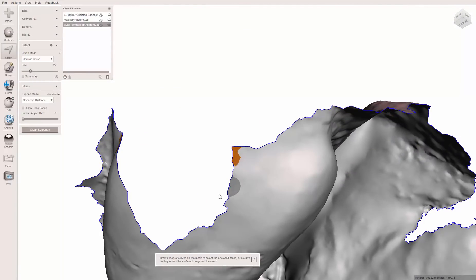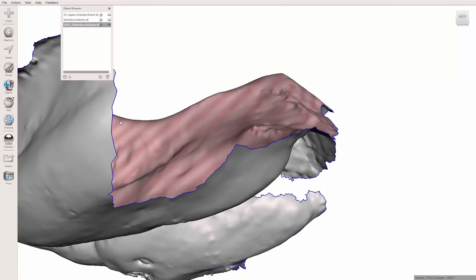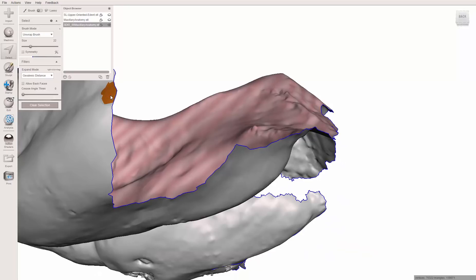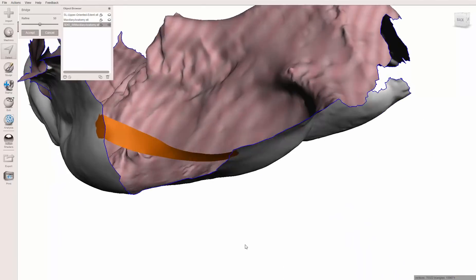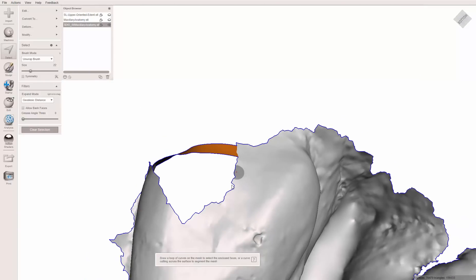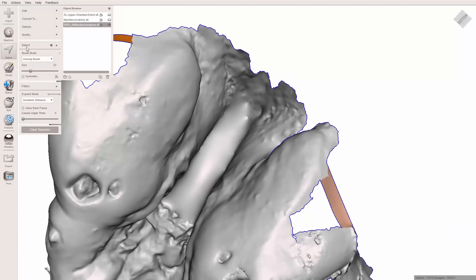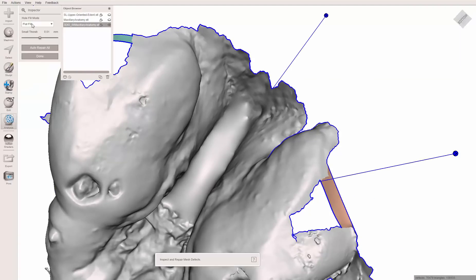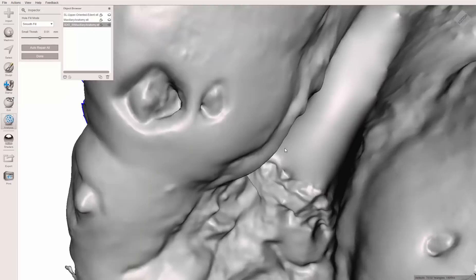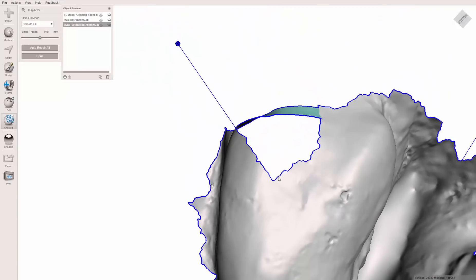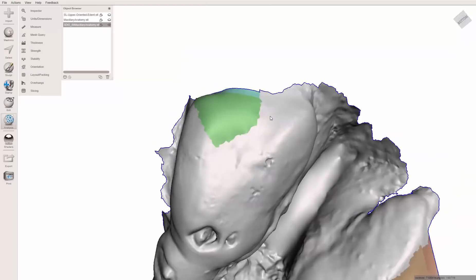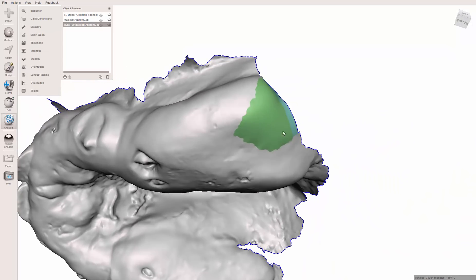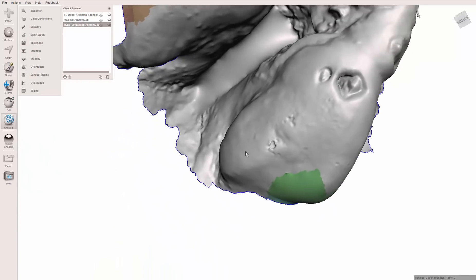So here. And then I'm going to dial this down a little bit so it tries to stay on this side. I did this a long time ago on this model. And now control B. So it's nice and smooth. That's fine. So hit that. And now, once again, I go to analysis, inspector, smooth fill, and click on this one. Click on this one. And now, I would say that's probably pretty accurate to her arch.